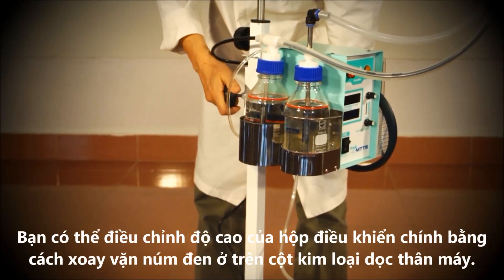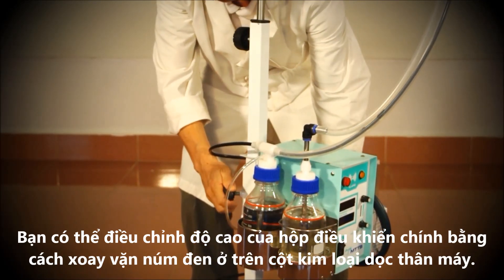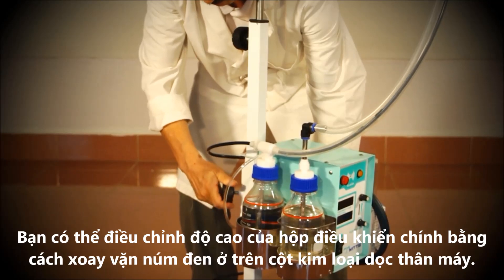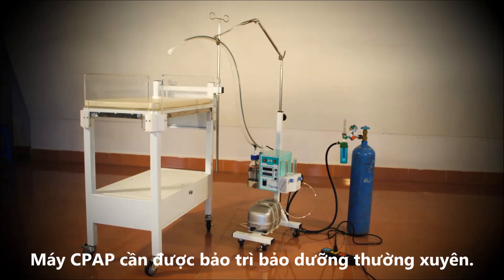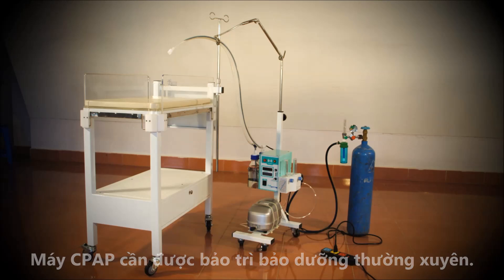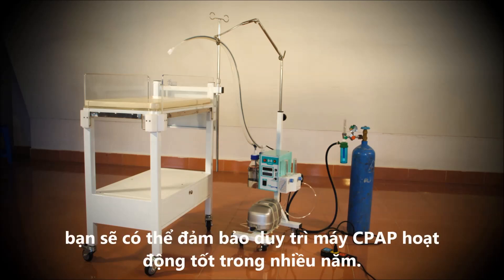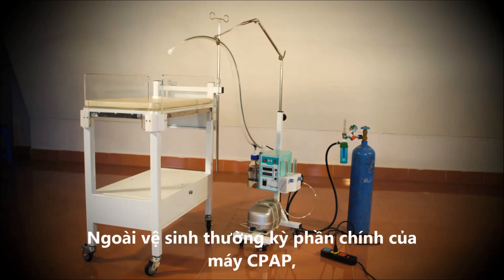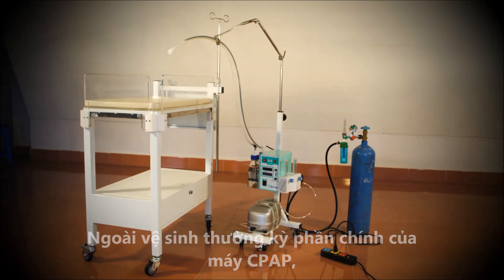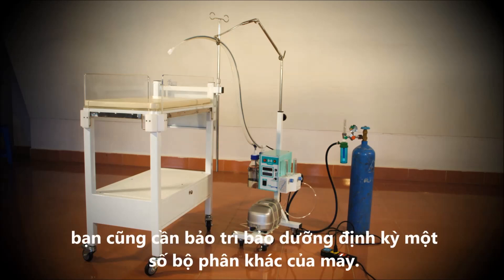You can adjust the height of the main unit by loosening and tightening the black knob at the back of the unit. The CPAP unit requires basic maintenance. Following a few simple steps will ensure that the CPAP device stays in good condition for several years. In addition to cleaning the main unit on a regular basis, you will need to conduct routine preventative maintenance on some of its components.